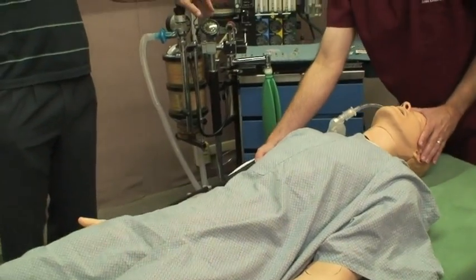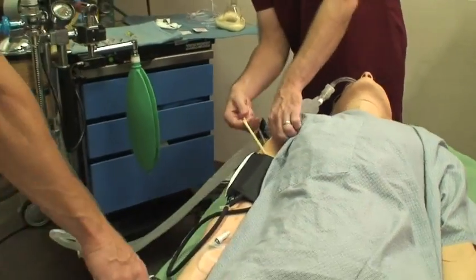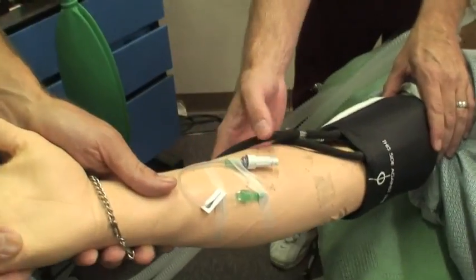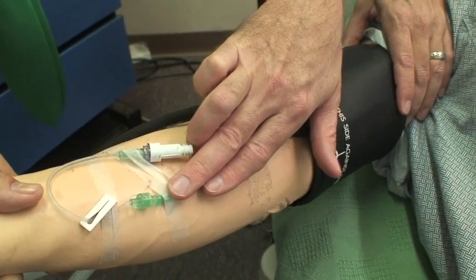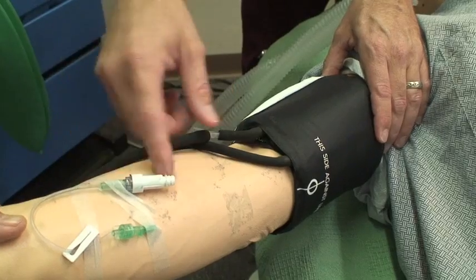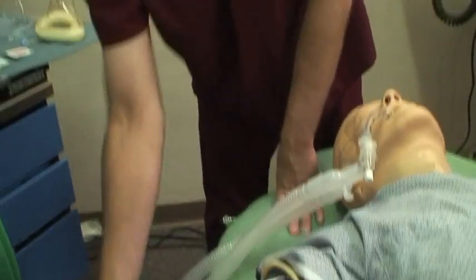He's got an arm over here that's specifically designed for IVs. We can actually put fake blood into this arm and start an IV, and then the students can get what they call flashback — when the needle goes into the vein you can get a little bit of blood flashback into the catheter so they know they're in a vein. We can run fluids into this arm, usually hooked up to a canister under the bed, so we can have actual IV fluids running through the mannequin.